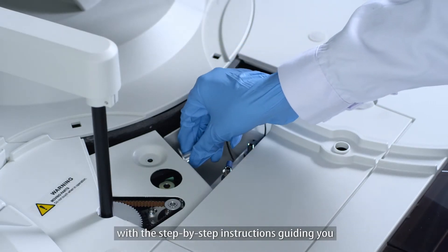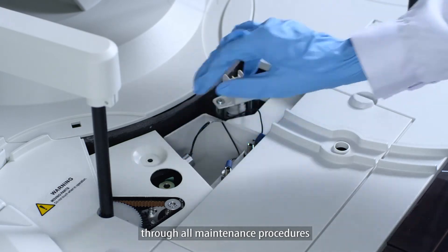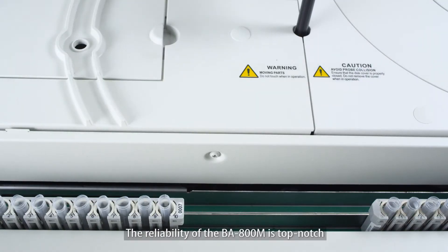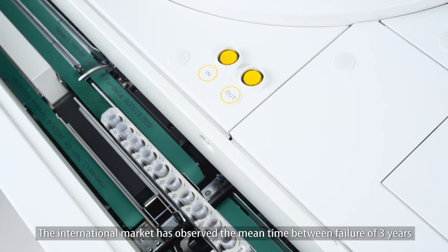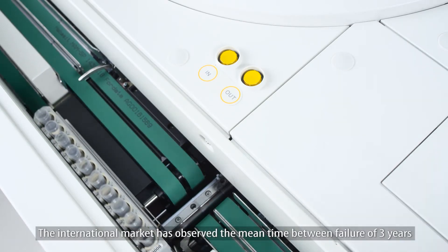The analyzer is easy to maintain, with step-by-step instructions guiding you for all maintenance procedures. The reliability of the BA800M is top-notch. The international market has observed the mean time between failure of 3 years.